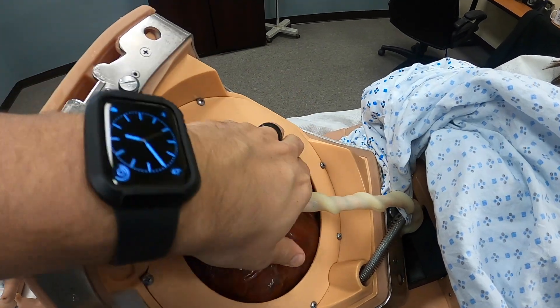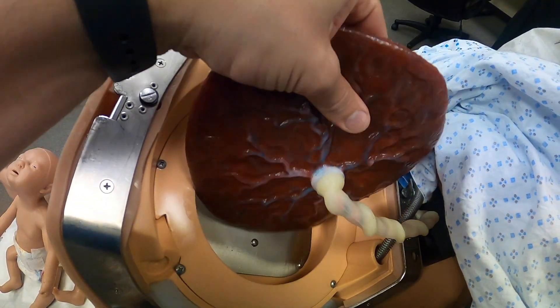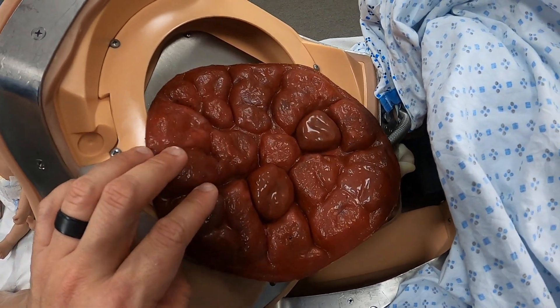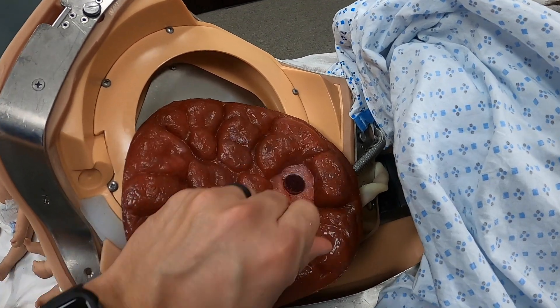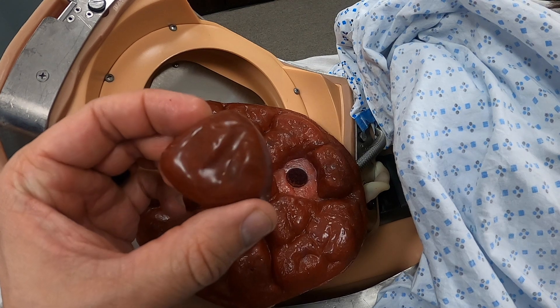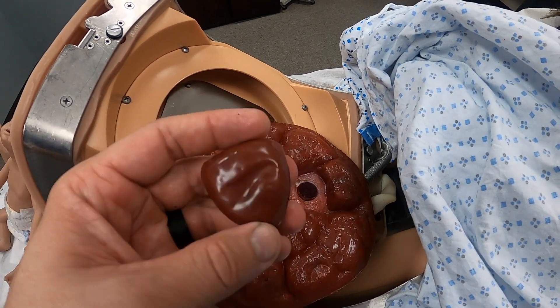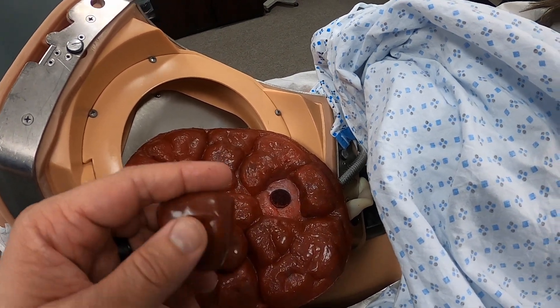At a certain point we will actually have the placenta be delivered, so the students get a good representation of what it looks like. We can also move portions of the placenta to represent to the students that the placenta must always be transported with the patient and inspected to make sure all of it has been fully delivered.